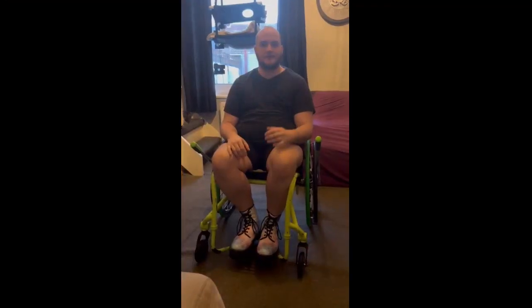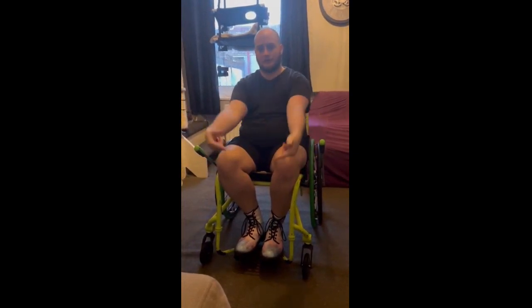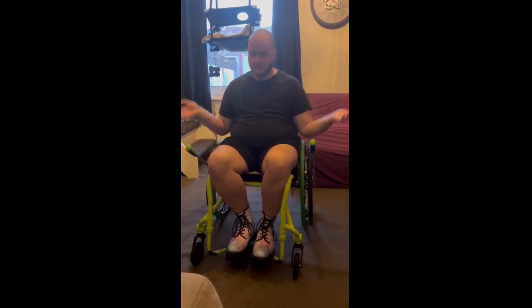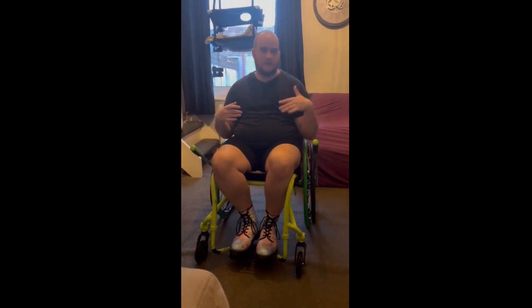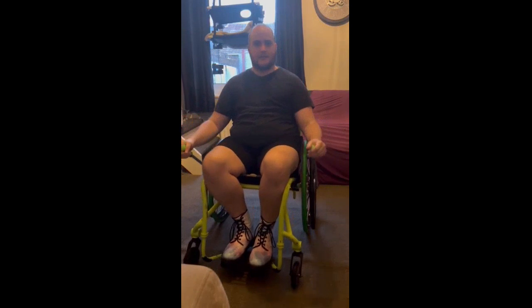If you're wanting to just sit, right now I have them set so that if I were to push forward it would propel, and backwards it would ratchet. Right now I'm not doing anything to them — they just sit like this. So if you're just pausing, you don't want to take them off or anything yet; they can just chill out just like that.